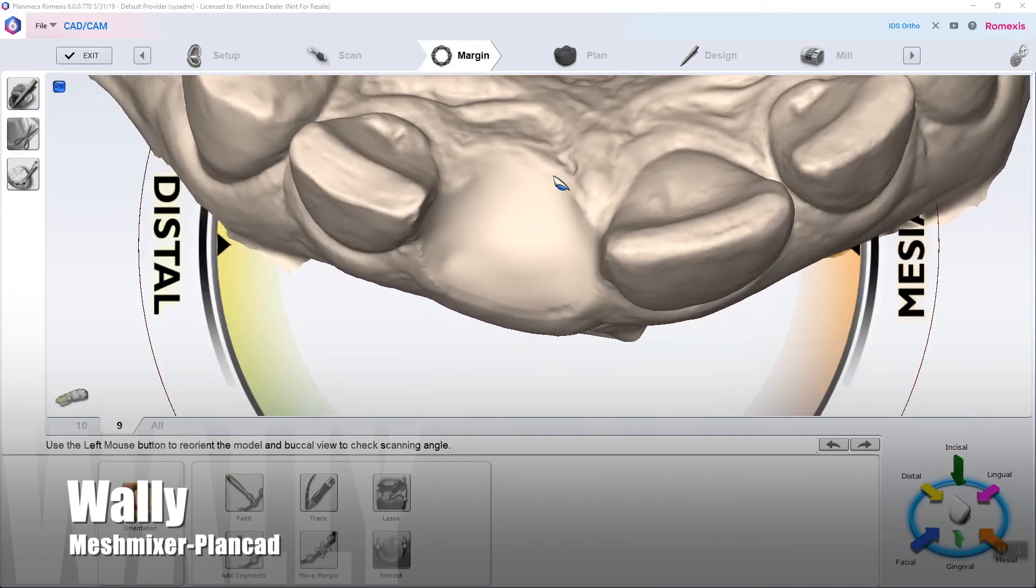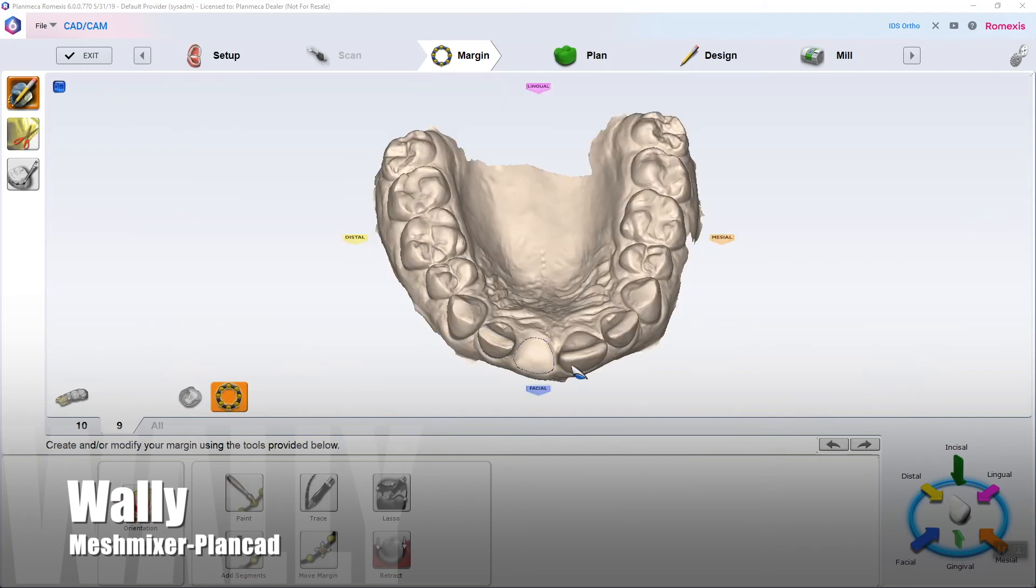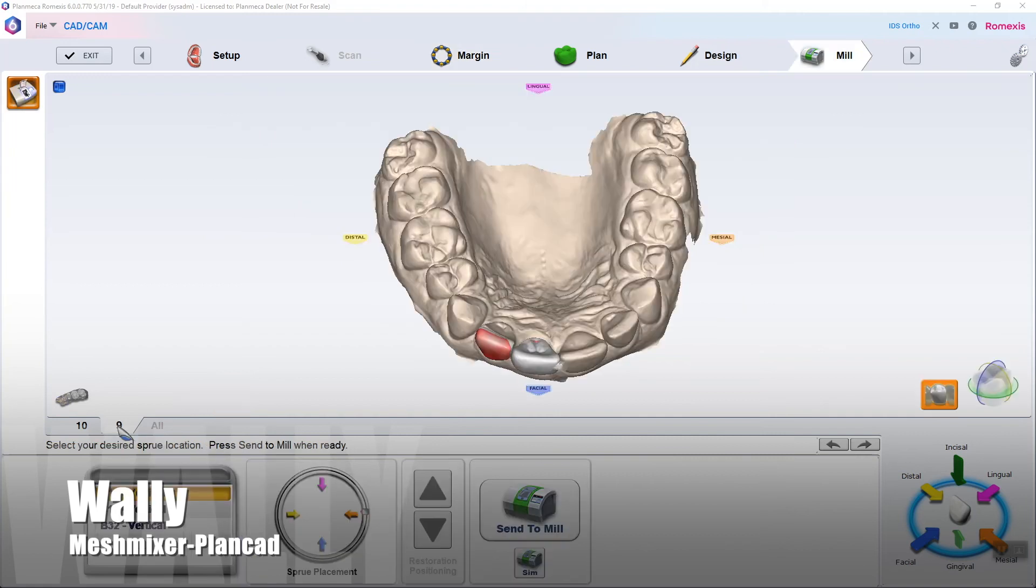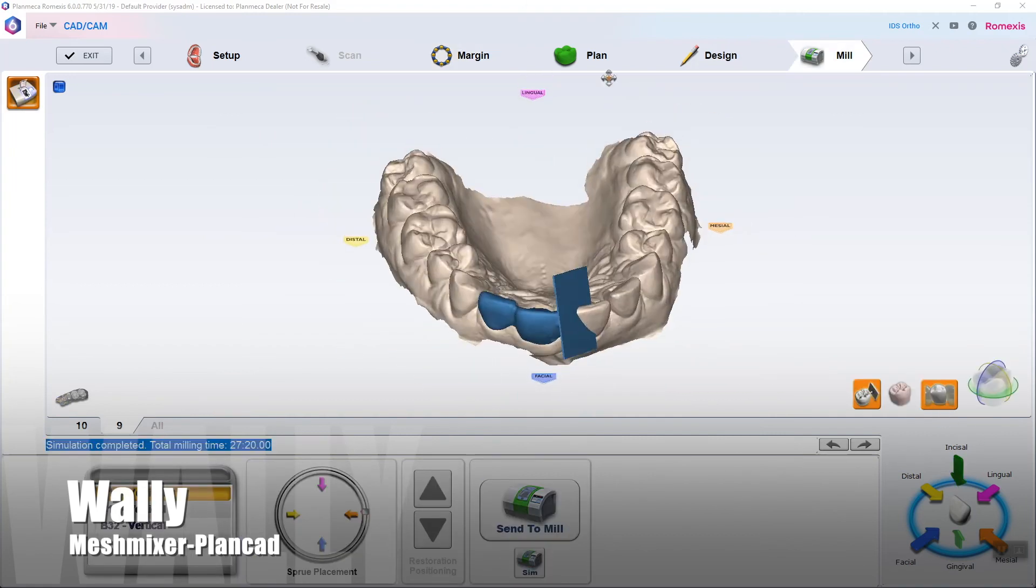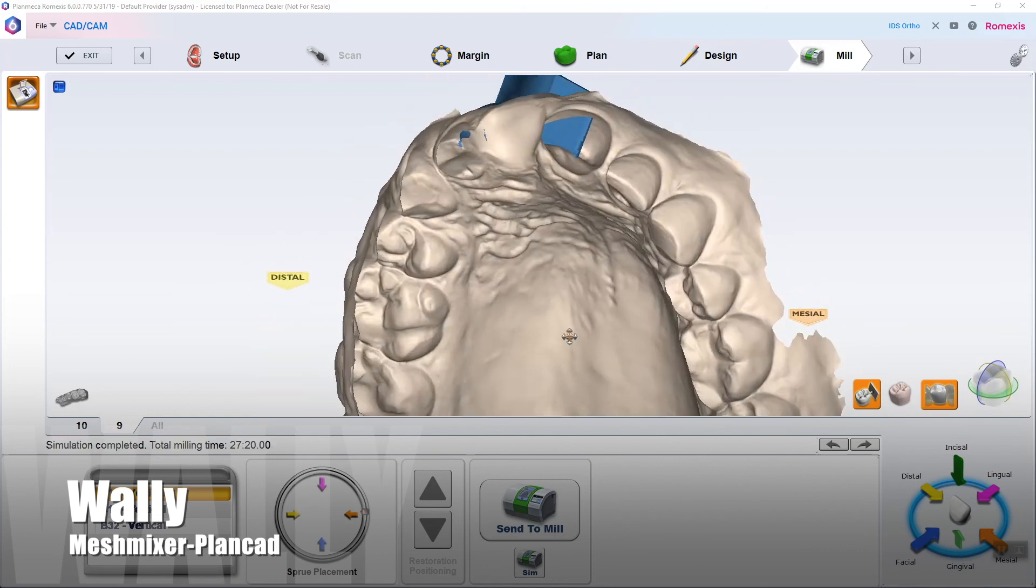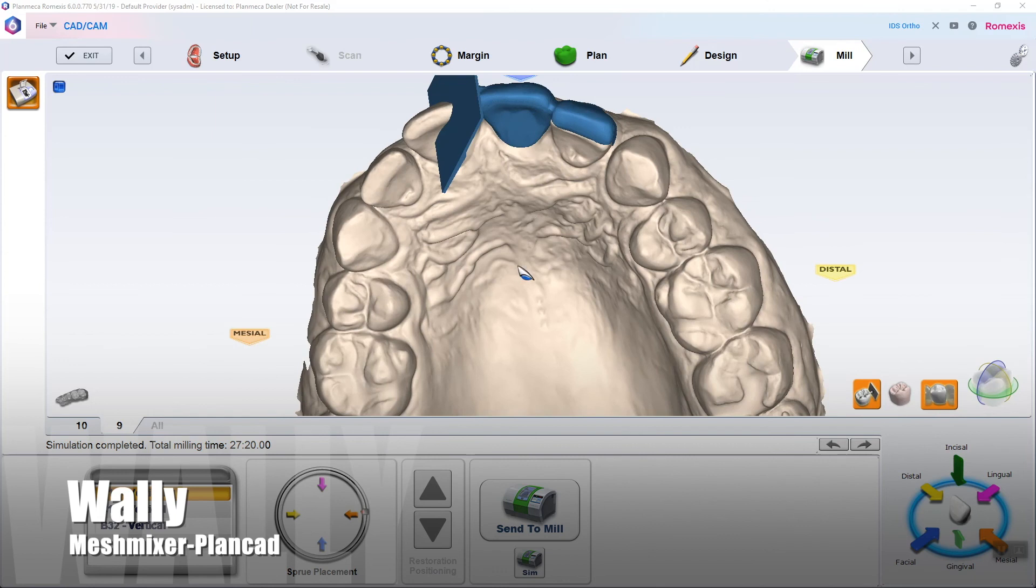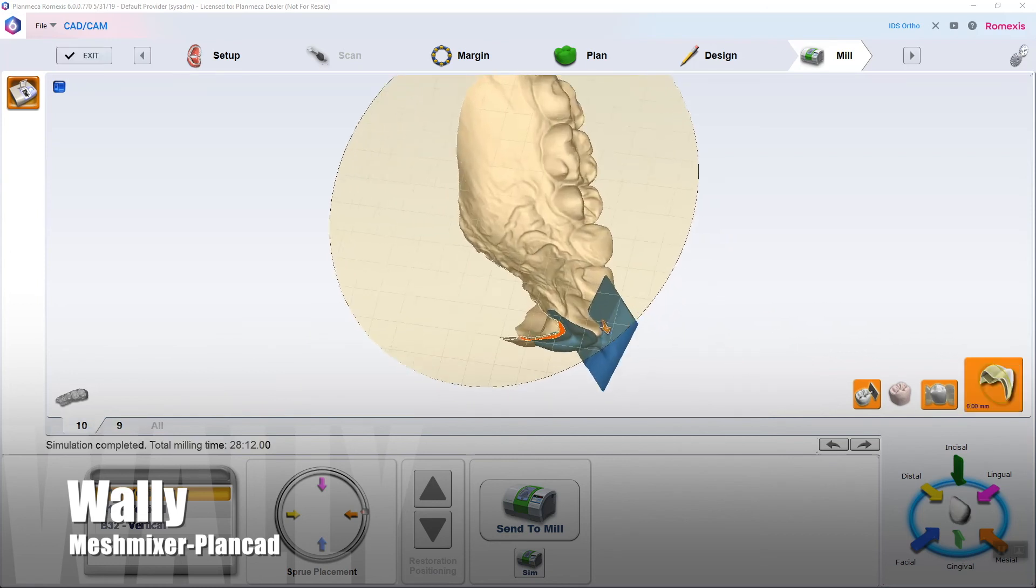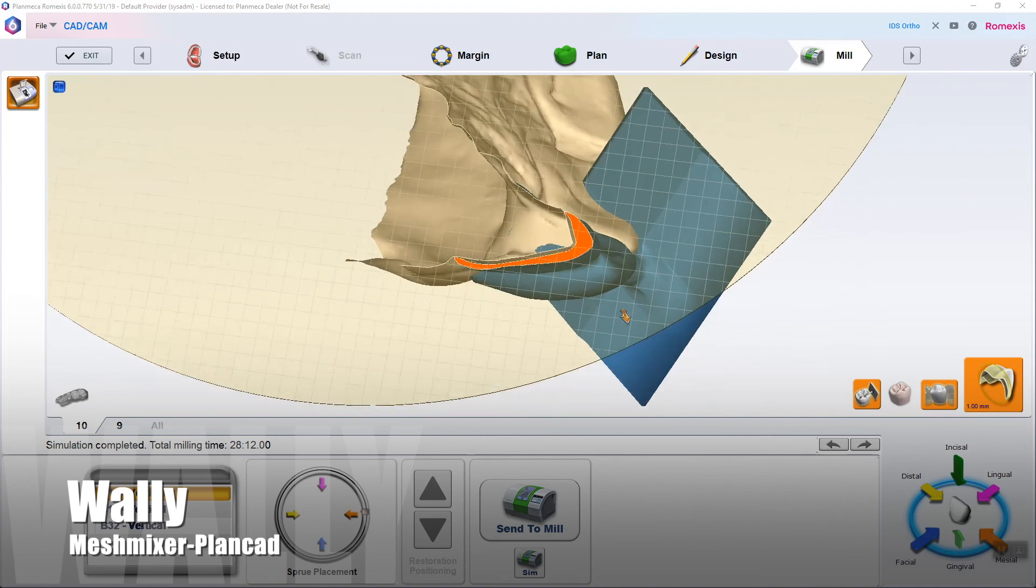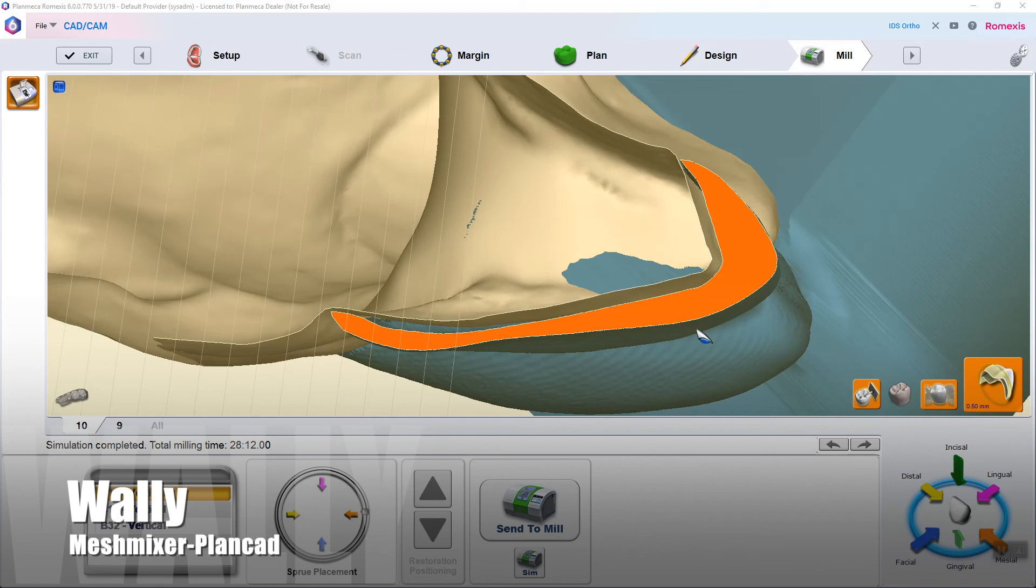Dual path of orientation. Now I am going back to the orientation tab, making sure I have tooth number 9 selected, because that's what I'm going to be milling. And I'm picked to orientation to where I can see all my margins at the same time. Kind of like the path of insertion, if you will. Now I'm in the mill tab. Mill simulation, just to make sure everything's going to fly. Doing a quick little sim. We'll go ahead and slice it real quick, right over the tooth. Just look at the fit and check for any warning signs. Looking pretty good there. Increasing my cement space for this, because it's going to be loosey-goosey. I don't want any binding. So there we go.